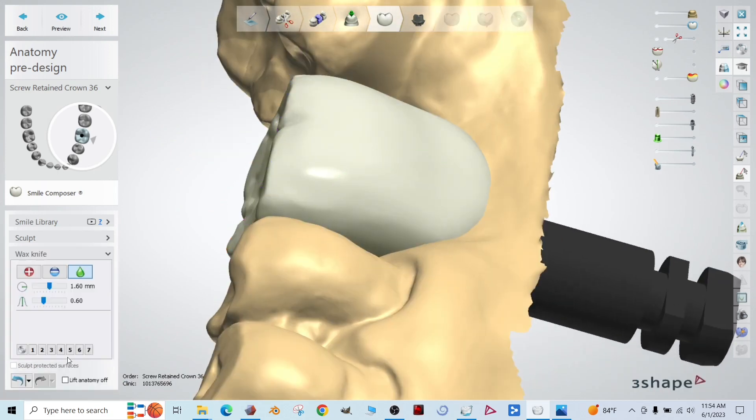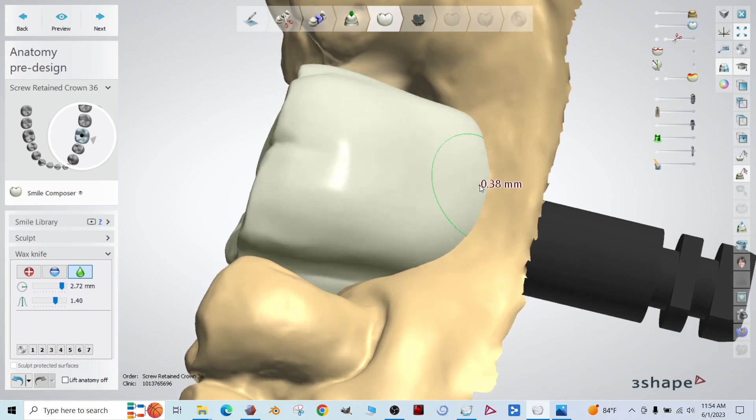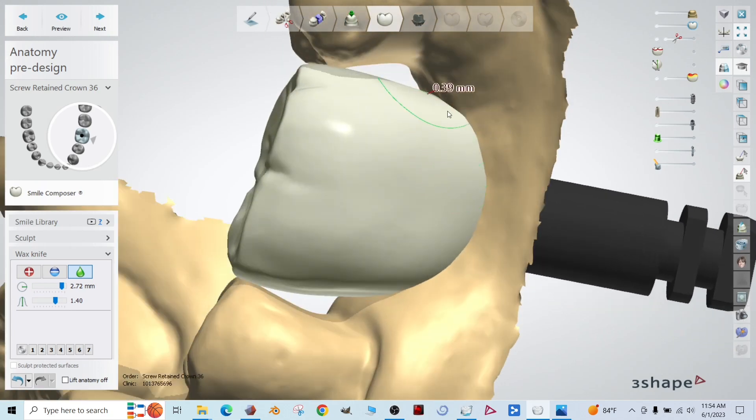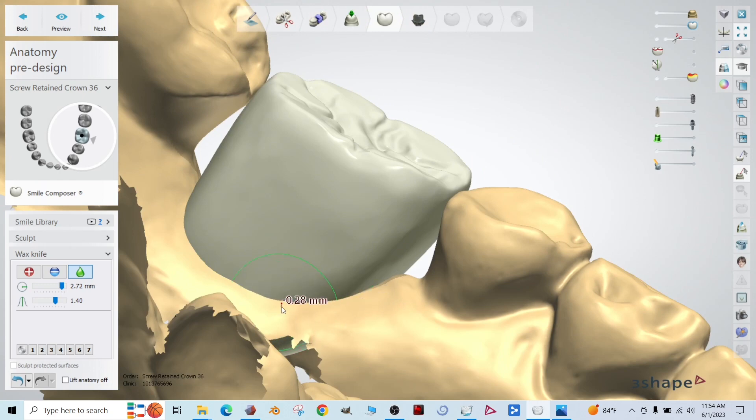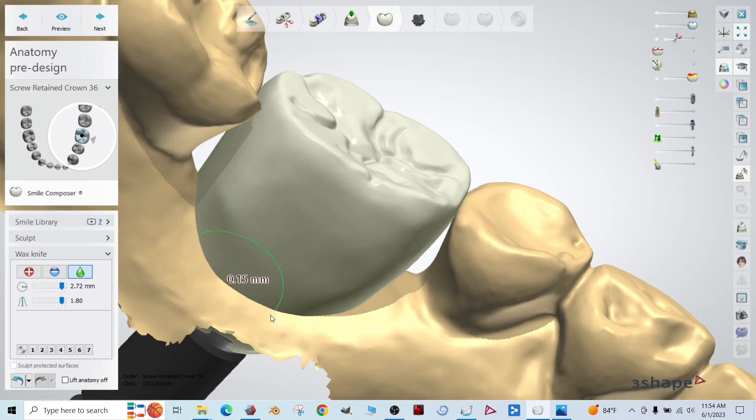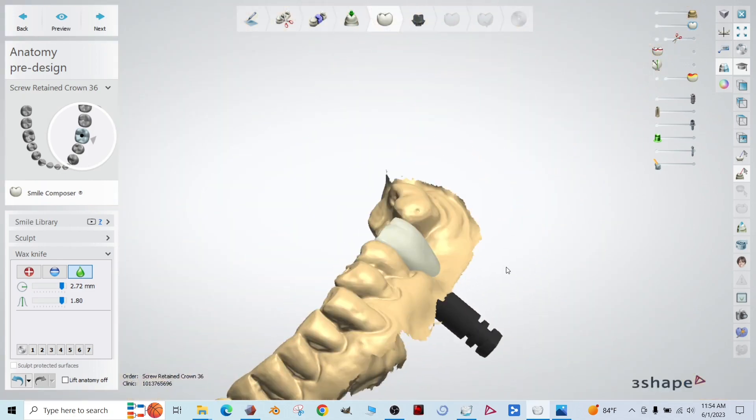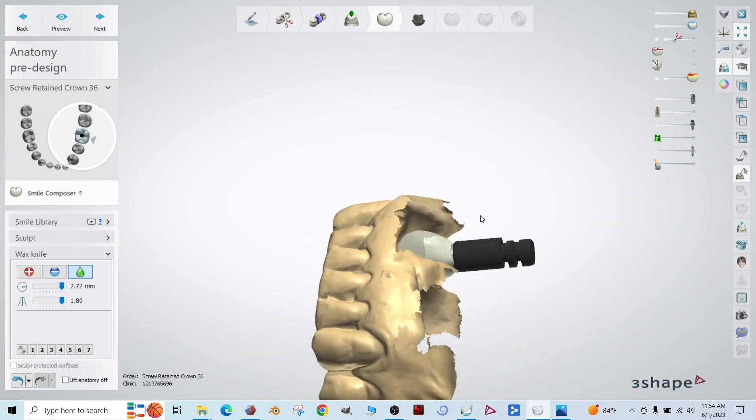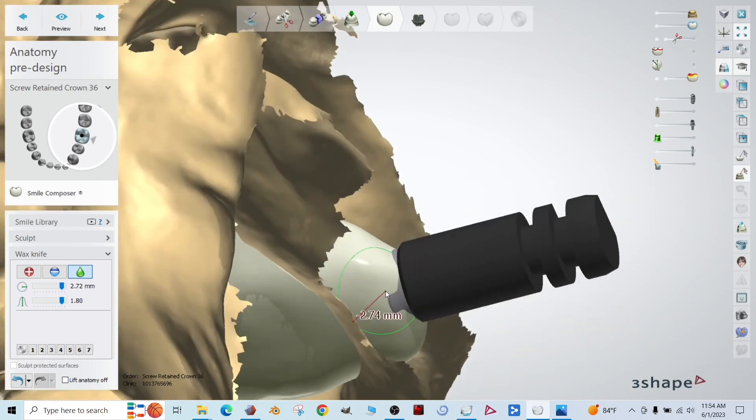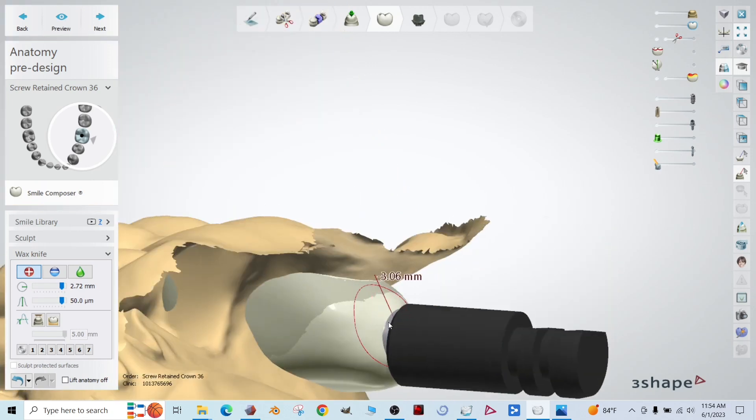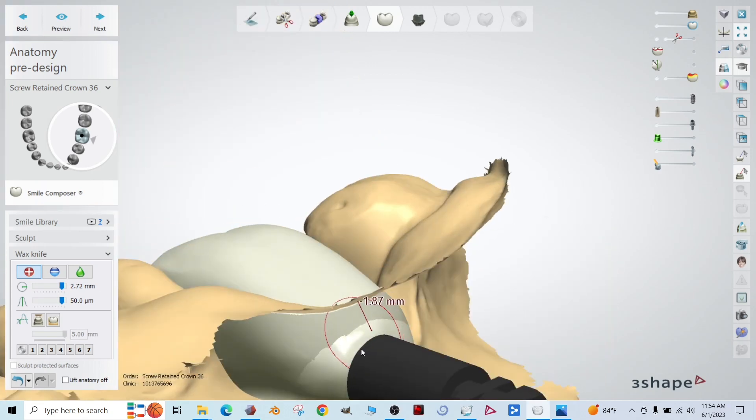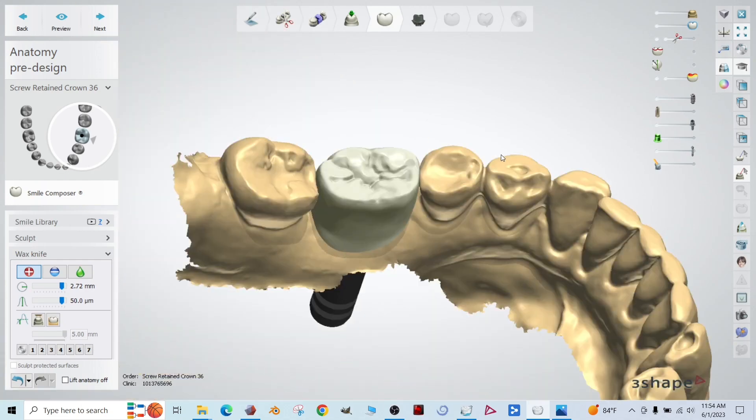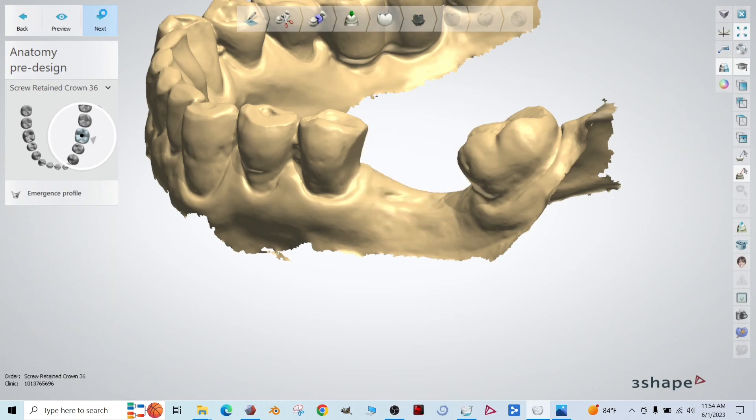Okay. I'm going to grab the spray can. We can smooth some of these contours out just a little bit, just to get that emergence to where you want it to be. Okay. I like it. I'm going to just thicken this up down here by the collar. Again, it doesn't matter if we go into it. You'll see in the next step when we're doing our emergence profile. Good. Click next.